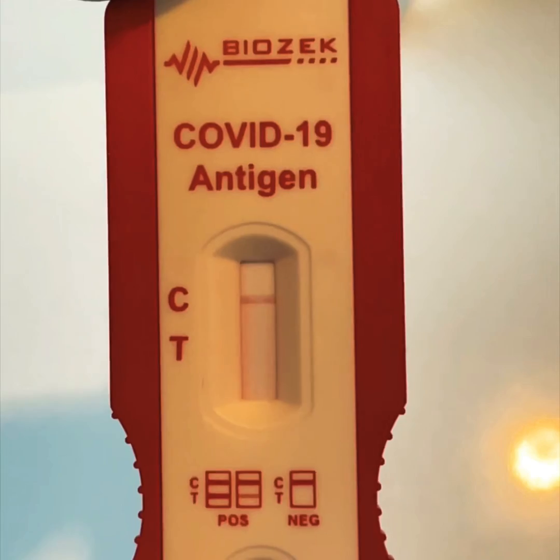You'll have to excuse my lack of nitrile glove on this hand — I can't quite get it over these fingers because they're a little bit delicate. This is the test kit, and this is your reader for a negative test. I'm looking for one line across the top, and that's going to offer me a 93.3% accuracy.